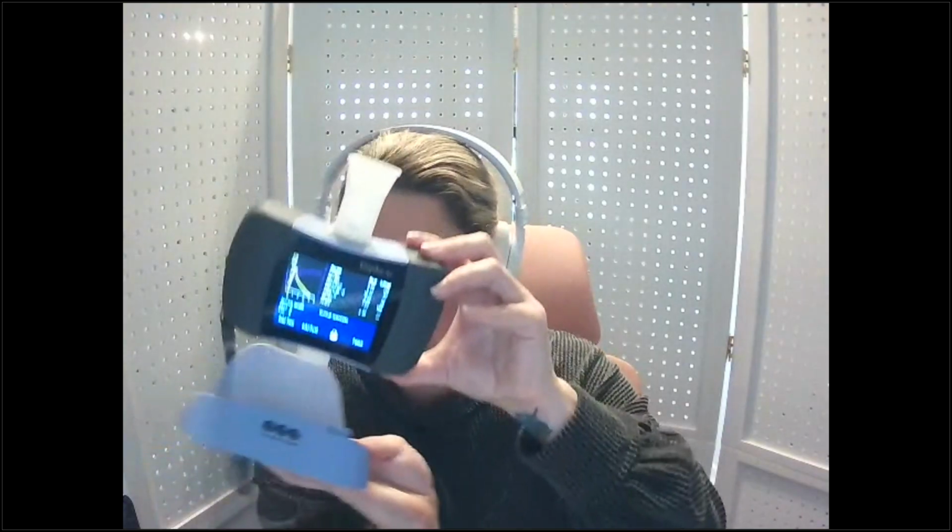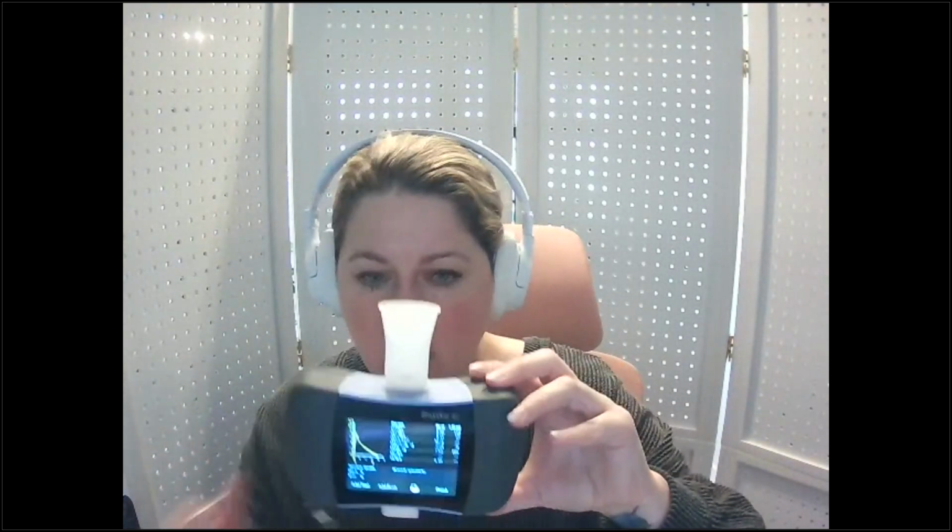From this screen, we can take it to our dock and hit the print button. If this dock is directly connected to a printer, it will send that automatically. Or we can click finish. And if this is connected to our computer, once we're back at the home screen, we can dock it and sync it to our software. So a few different ways that we can use this device, which is really nice, but a little bit of a different flow depending on how your office is using that device.